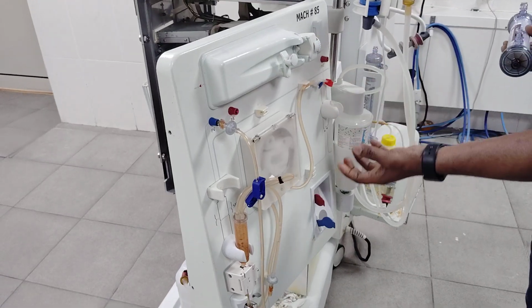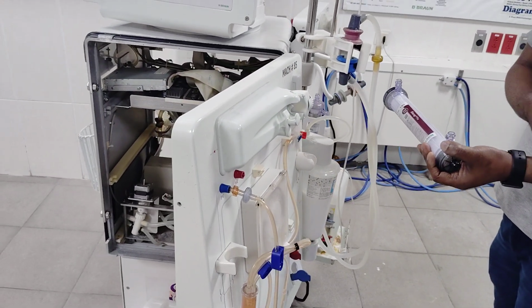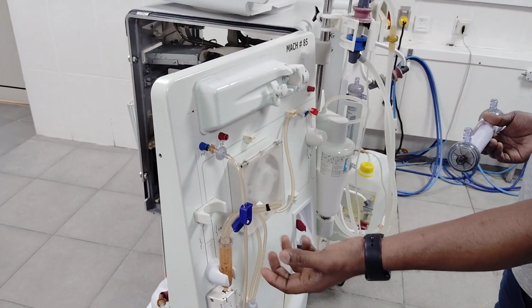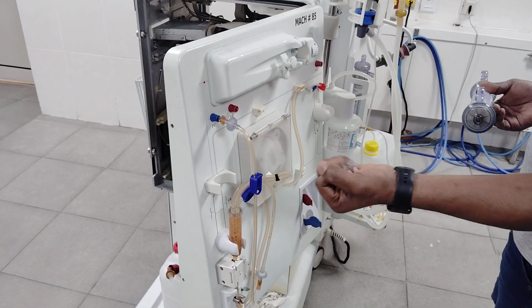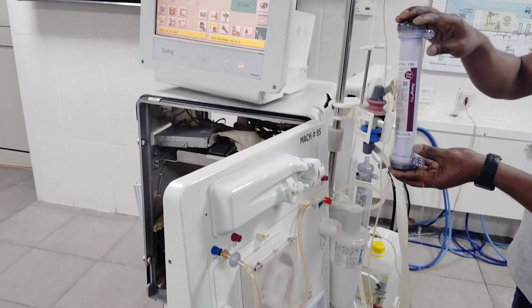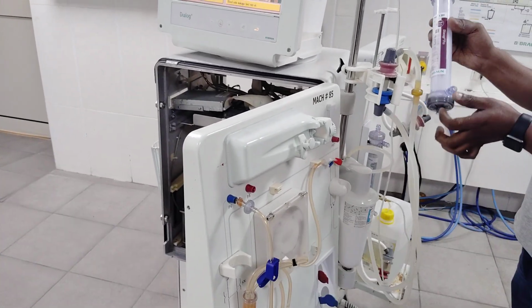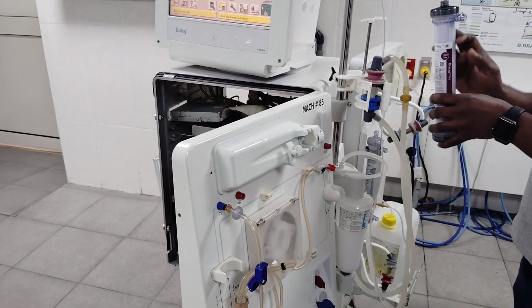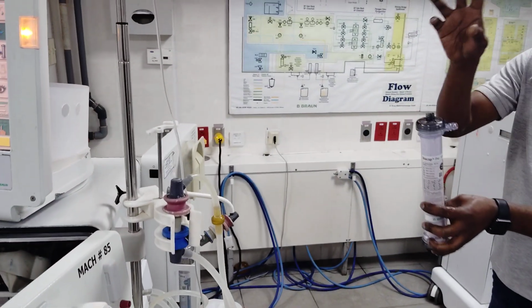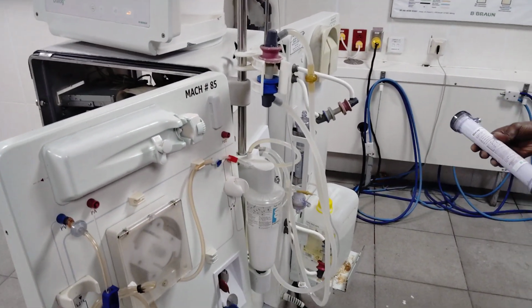During priming, they will connect it over there, and there are two needles which are connected to the patient, arterial and venous, we call them. Arterial and venous, it will connect to the patient. It will pull the blood from the body and through the pump push it to the filter. Once it goes to the filter, it will filter by taking our dialysis water. This will be connected over here. So it will try to balance. It will go through the filters, balance, and remove the extra fluid. Whatever they program in that one, it tries to remove and throw away the water. This one, this is single use.